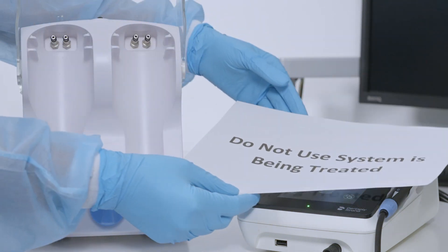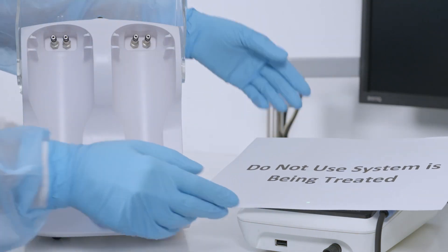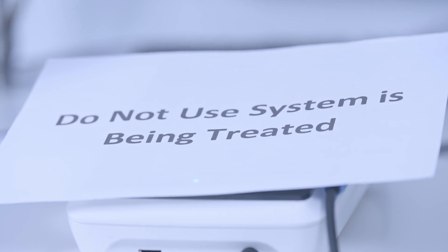As a precaution, place a sign on the scaling system indicating it is being treated and should not be used.